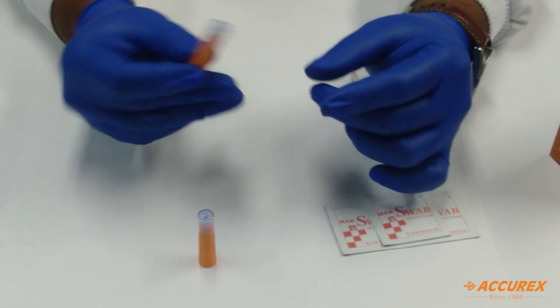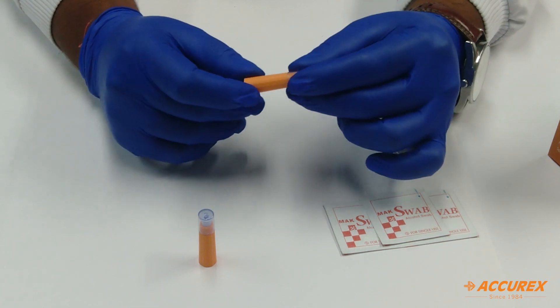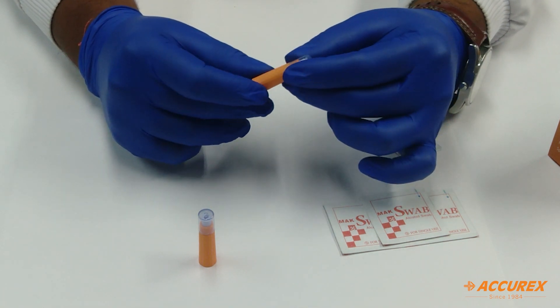In this way, you can use this small lancet device anywhere at home, also lab, or hospitals. Thank you.